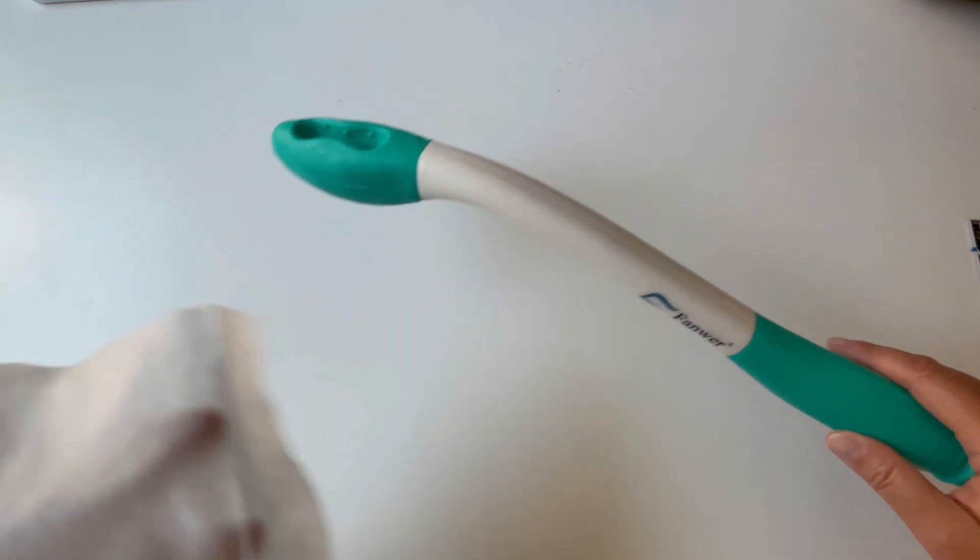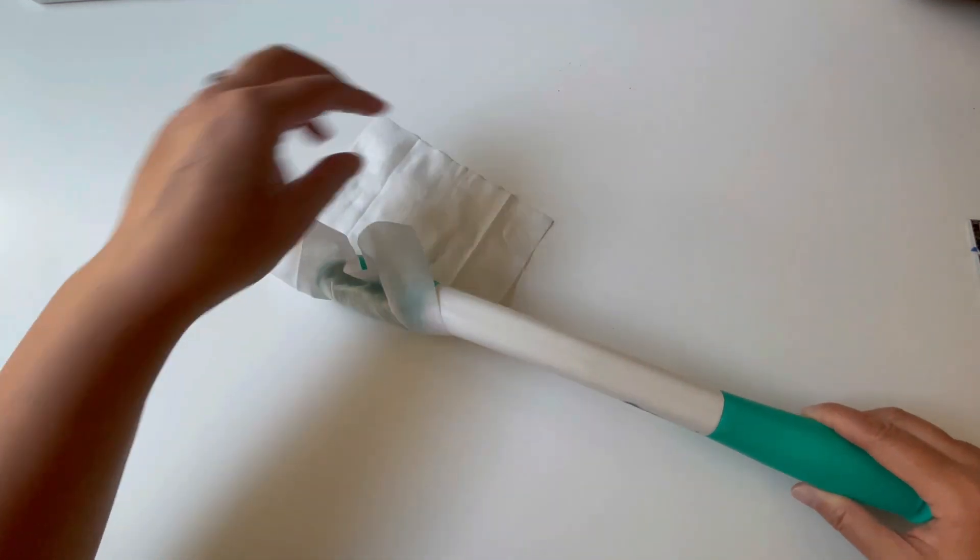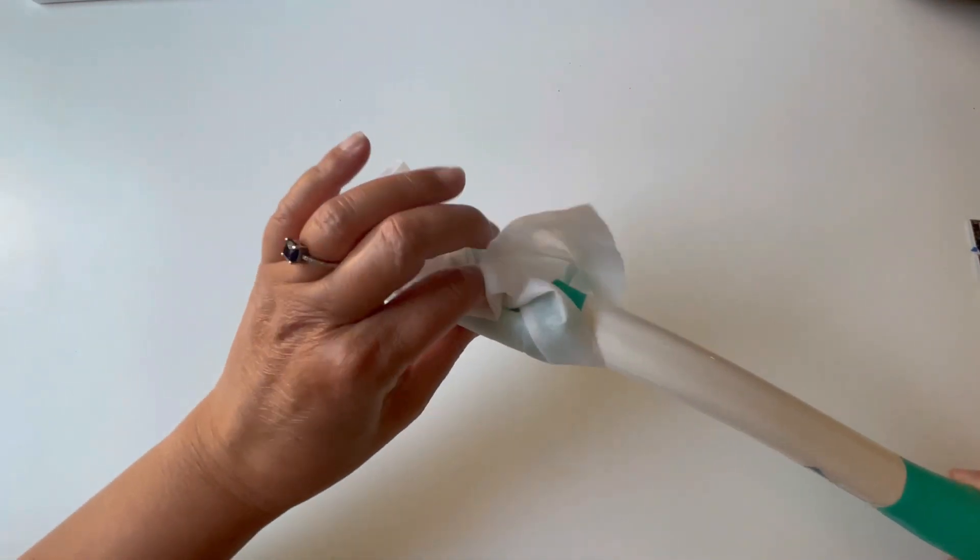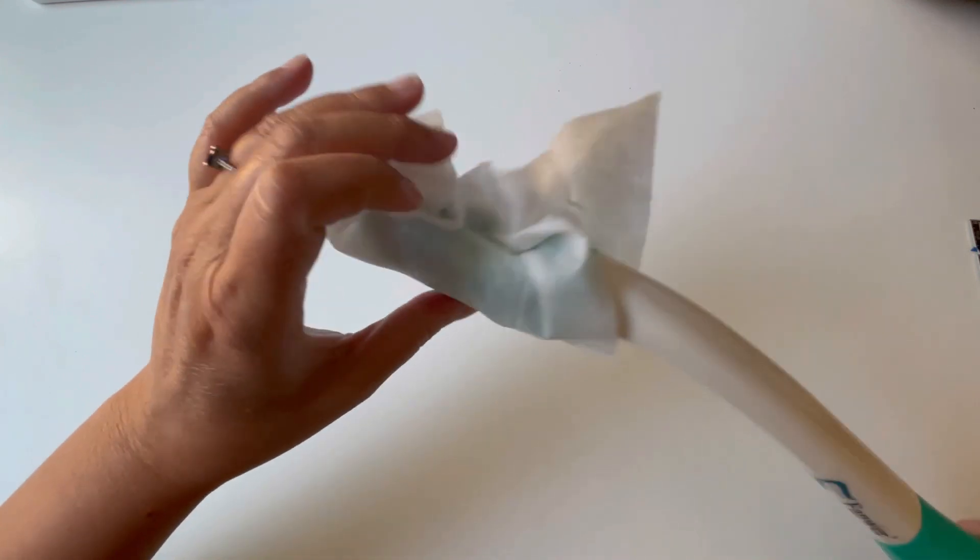And to show you how it works, here is a wipe and you simply put the wipe in like this and you secure it and then you can wipe yourself.